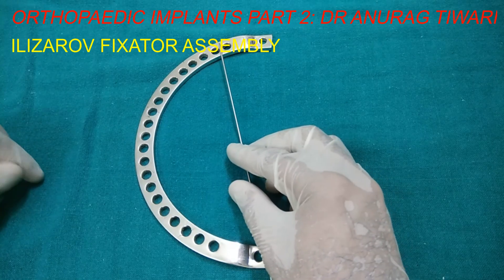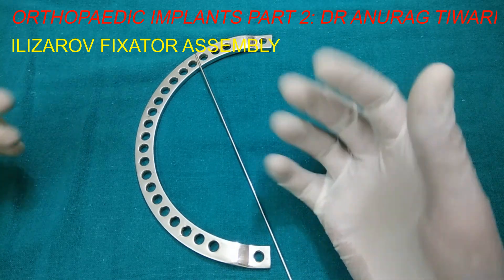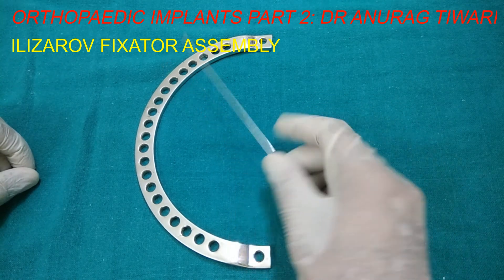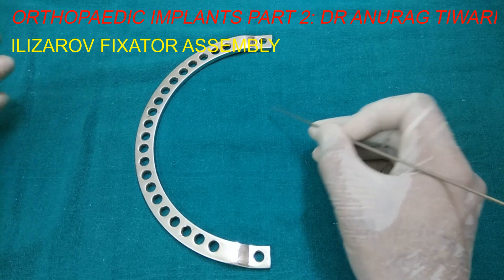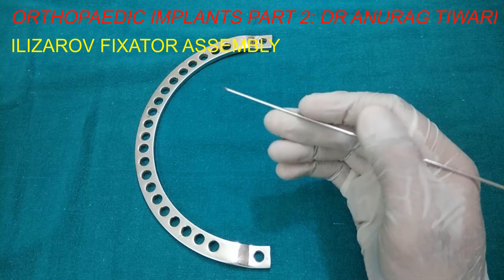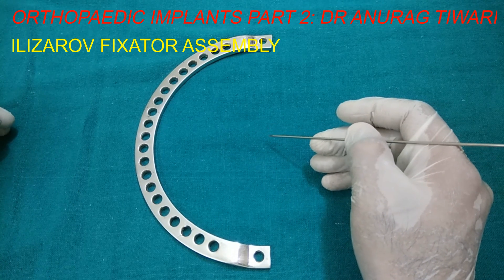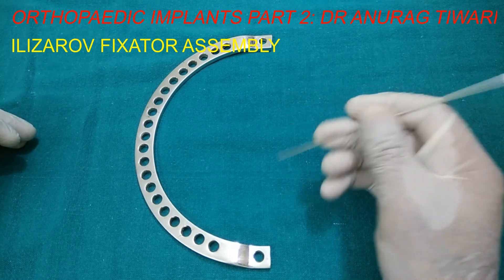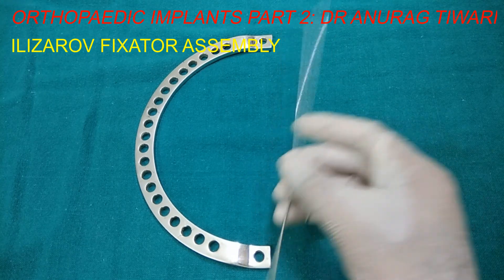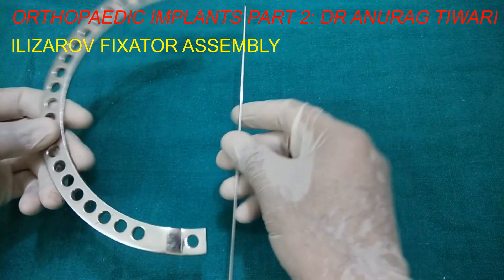The principle of the Ilizarov fixator is distraction histiogenesis — histio means tissue and genesis means to form, so new tissue is formed through distraction. The distraction rate is 1 mm per day, divided as 0.25 mm four times a day — morning, afternoon, evening, and night. The patient rotates the rods 0.25 mm each time to achieve 1 mm per day. The components include half rings, full rings, wire fixation bolts, connecting rods, screws, and plates.